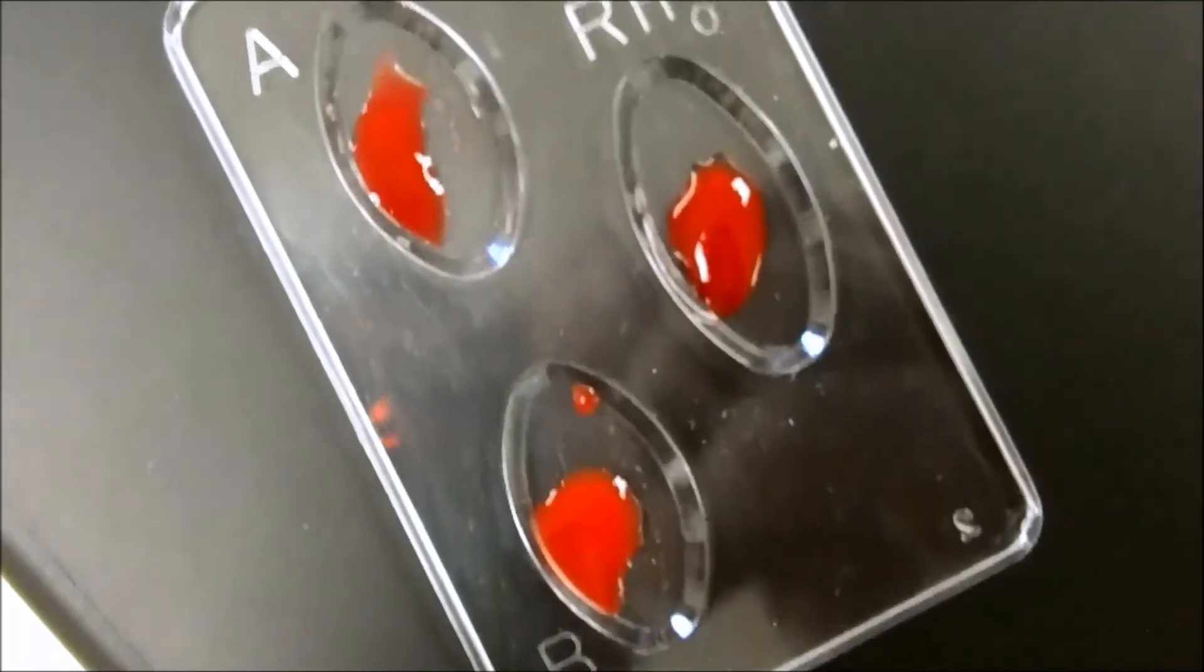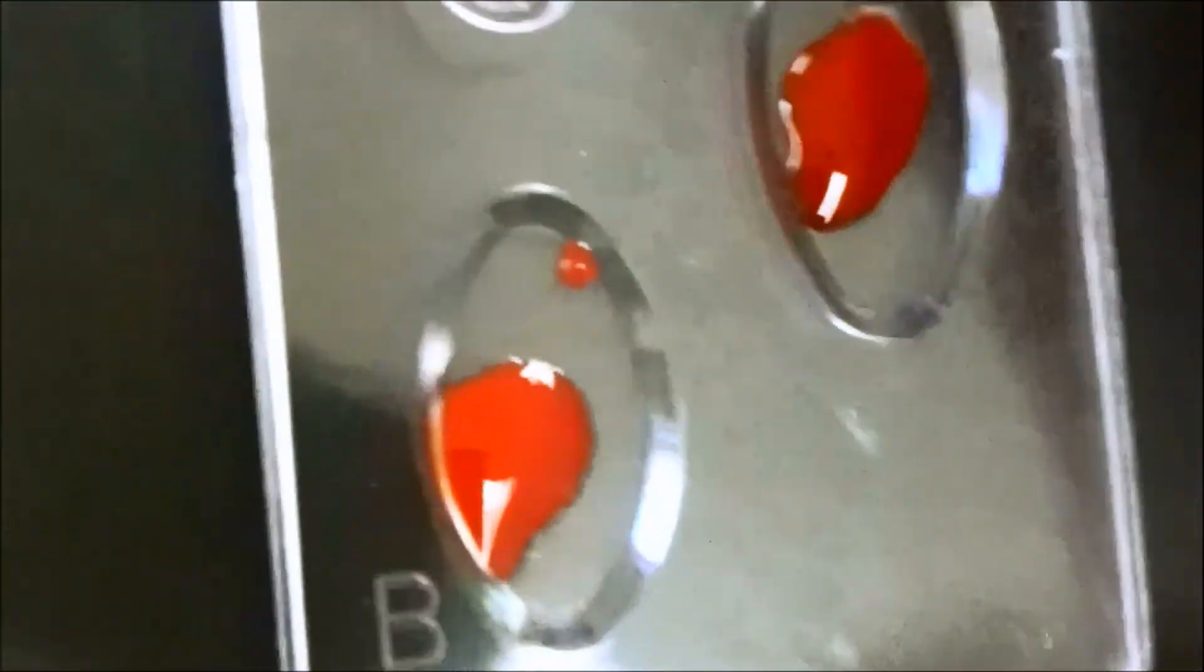So those are going to go in the Sharps containers, which is across the room here. It will go in there. For proper disposal, always, while we wait to see if we can see a response. And I might have to get us some better light. And I don't know if we'll be able to see this with the camera. Hopefully we will. Well, there's no clumping in B. There's no clumping in A, which is what it should be. And we should see clumping eventually in the RH. So hold on. I'll turn the camera off for a minute while we wait for this to warm up.